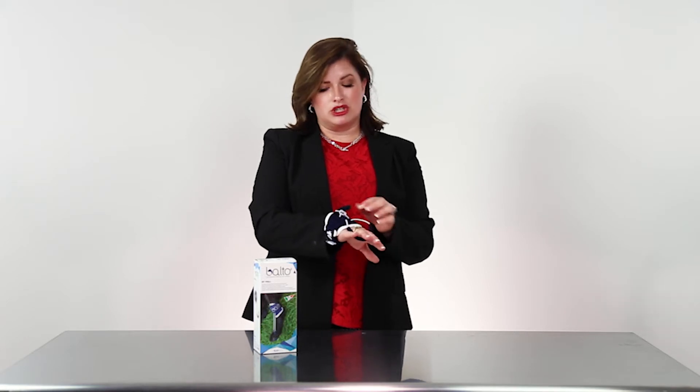You're going to position this up on the leg, take the bungee around a couple of toes, and you're able to adjust this by lifting the velcro here. Adjust your bungee to the length that you need to give them proper support and comfort. The blue tubing on the bungee itself you're also able to move and adjust a little bit. So give them what they need to move forward, track on their paw pads, and have better stability.